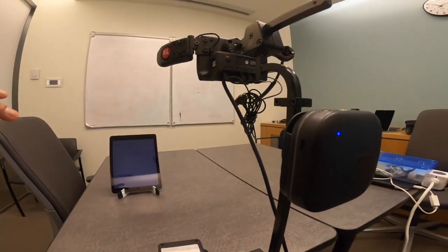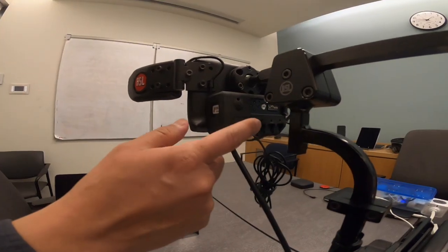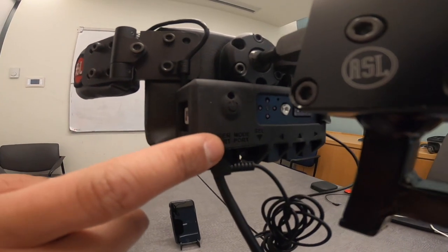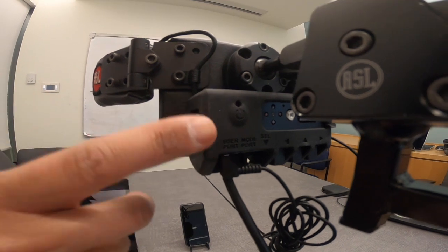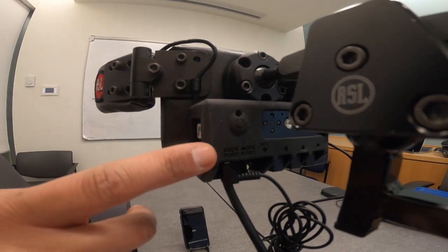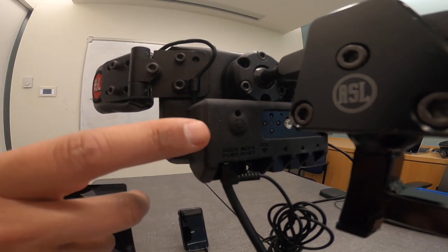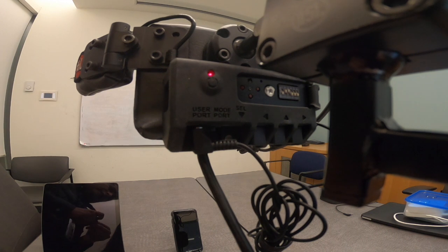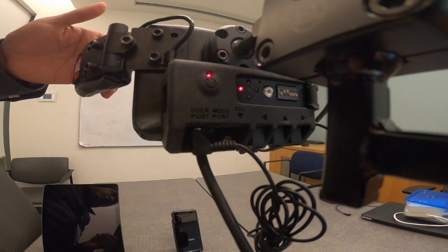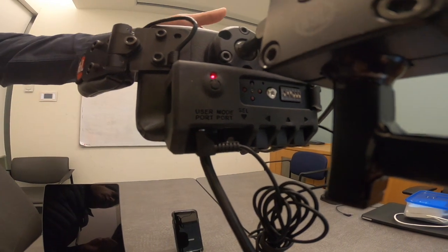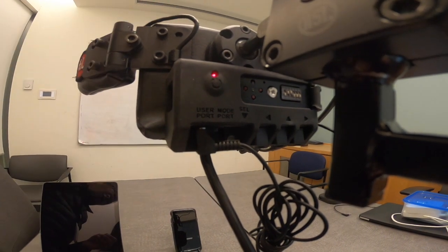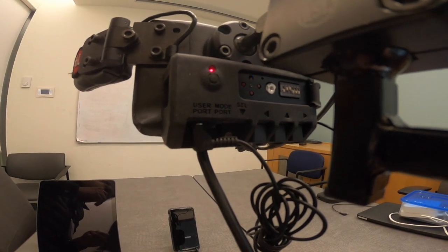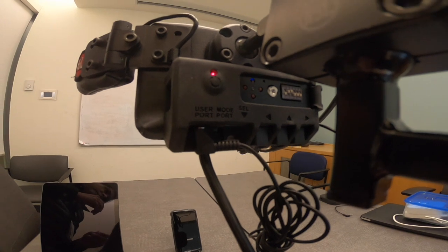Here you can see the different elements of the device, the power button and the user port. The user port is where we have our switch connected that we will be using. As you can see, when different pads of the head array are activated, a corresponding light reflects a decision on the Atom.